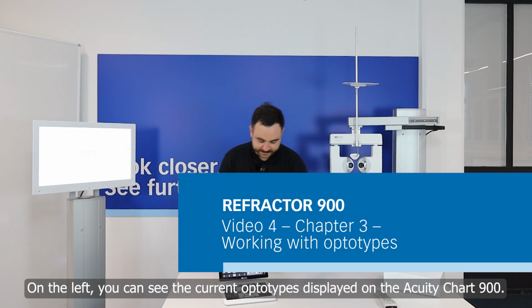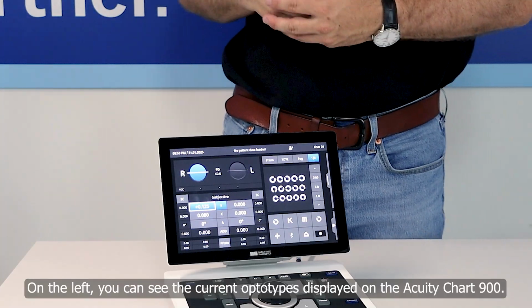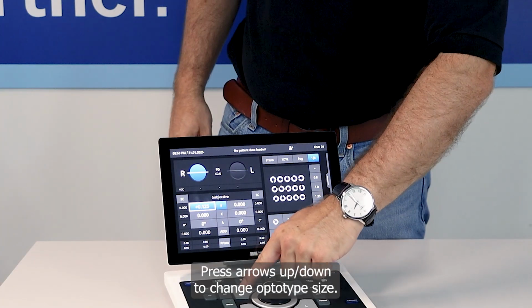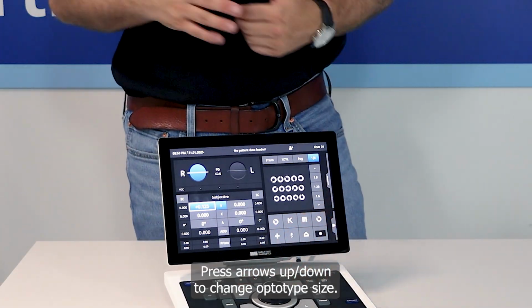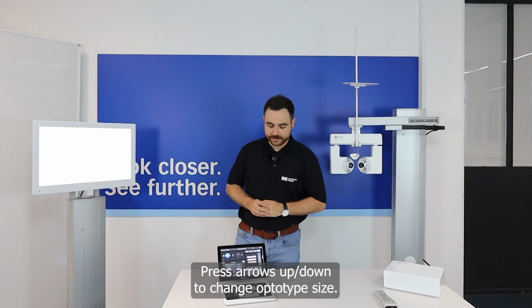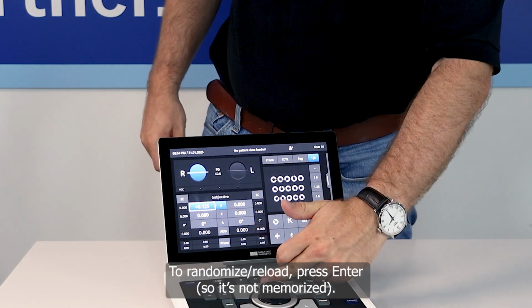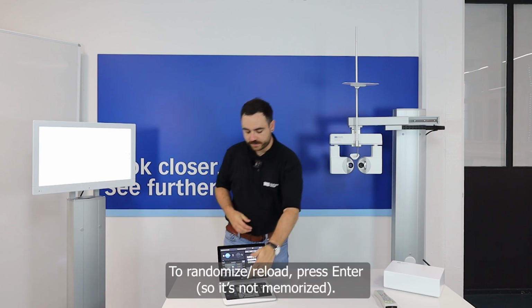Now here on the left side, what do you see here? You can see here the currently displayed optotypes on our Acuity Chart 900. If I press the arrows up and down, you can see the optotypes are changing the size. And also, if I want to randomize to reload it because it's already known what's displayed, you can press our enter button.